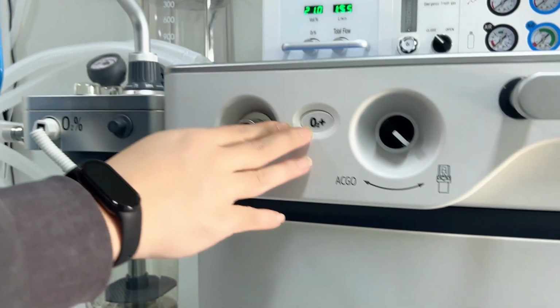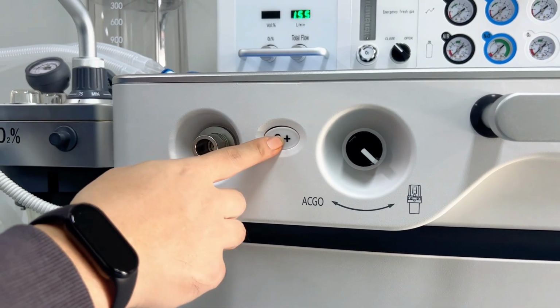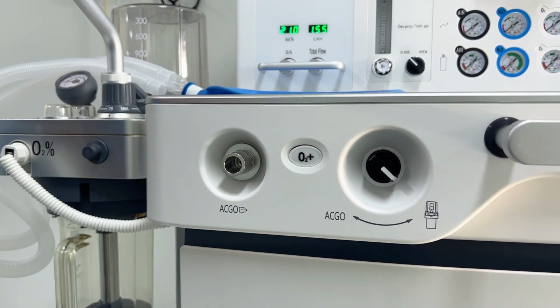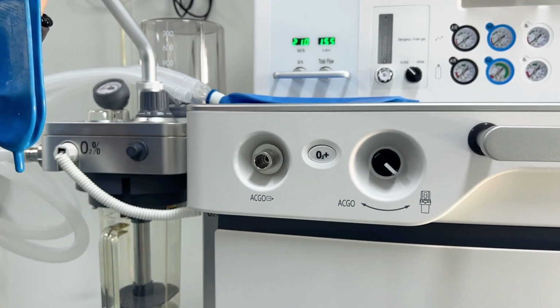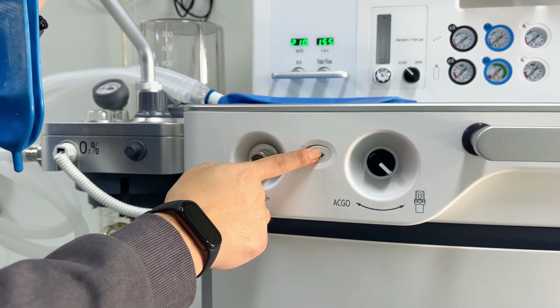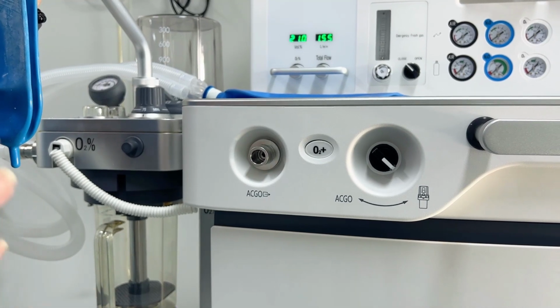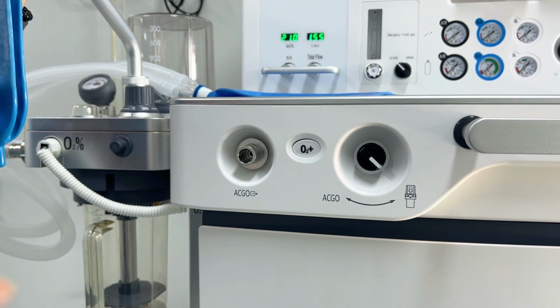By the middle side here, we have another small button. It shows the oxygen plus. Actually, this button is for the rapid oxygen or oxygen flush. And it's usually used, for example, if during the operation we find the patient's SpO2 is very low, they need some pure oxygen, then we can press it one time by one time. And every time we press it, it will give total pure oxygen with a big flow to the patient to help them to recover their SpO2.